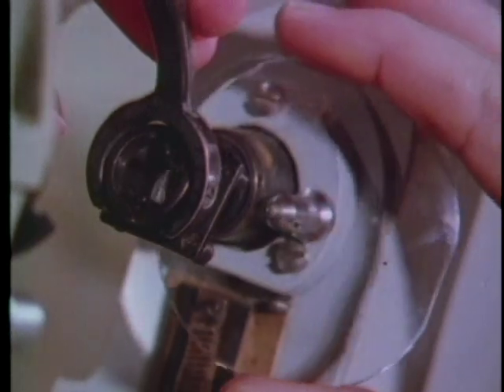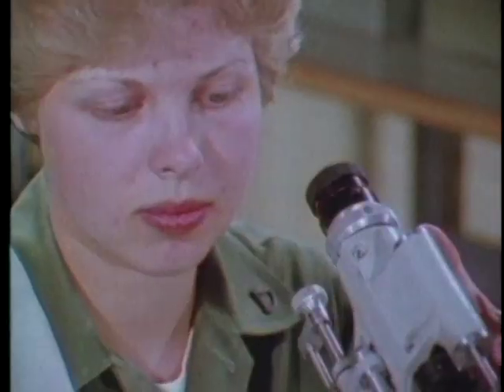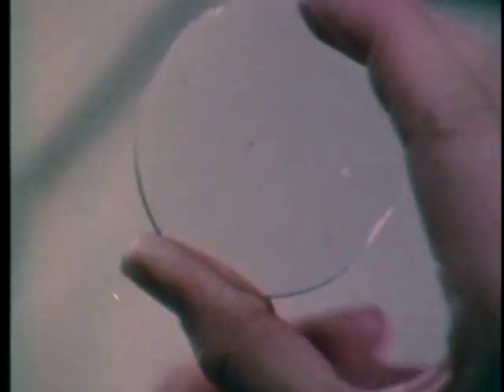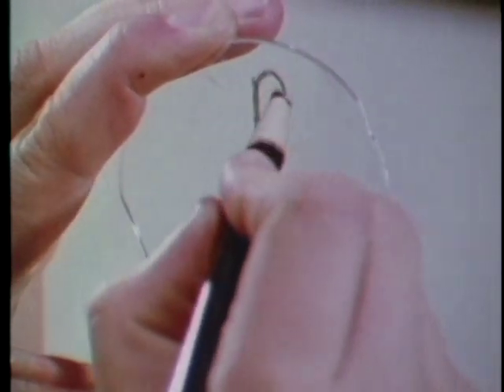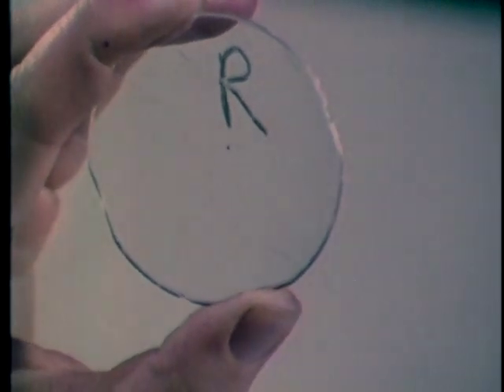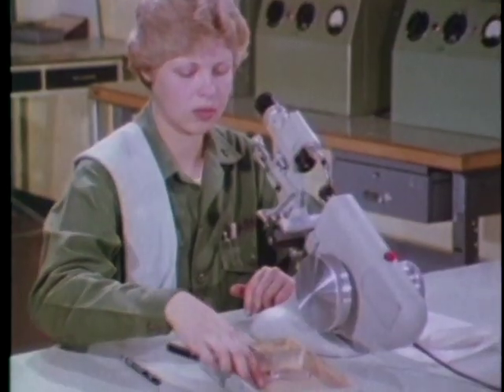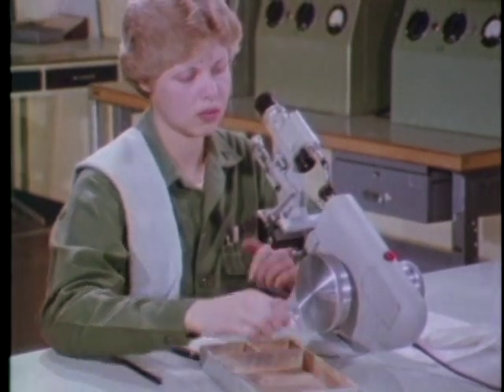Remove the lens. For this spherical lens, you only need the center dot, so wipe off the other two. Finally, mark it with an L or R as appropriate in an upper corner of the concave side. That completes the procedure for neutralizing a spherical lens.